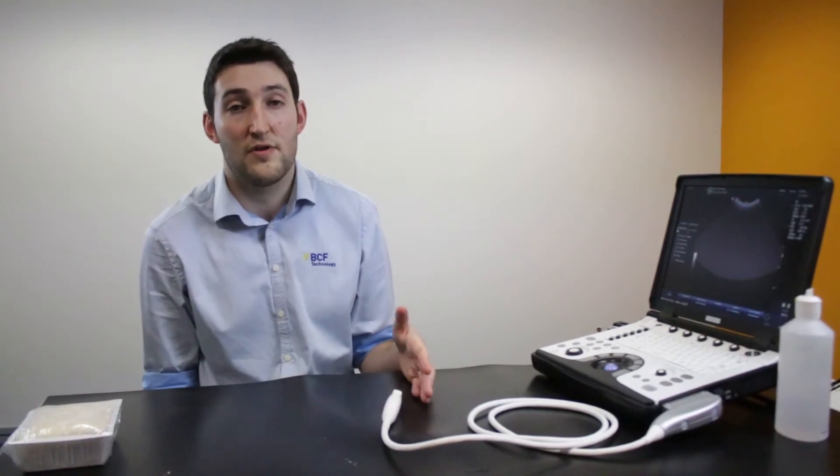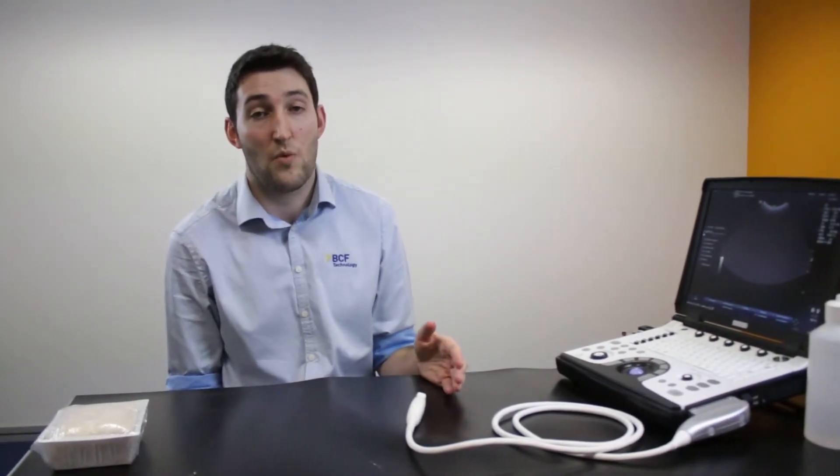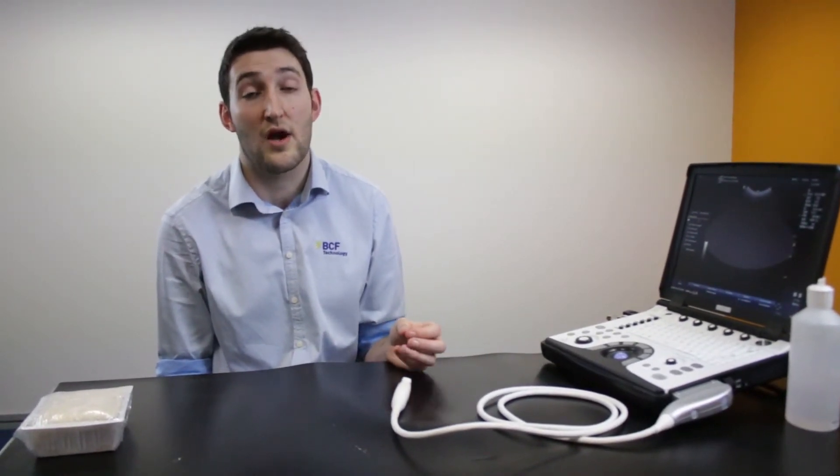There's nothing to stop you using a thinner needle or indeed a wider bore needle as well. Probably if you're going to be using a wider bore needle that's going to be if you're draining fluid from a cavity. And if you're going to have a higher gauge needle, so a narrower needle, it's probably if you're going to be aiming for more vascular structures.